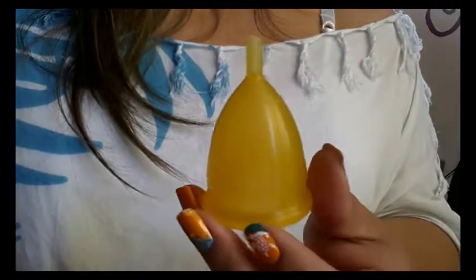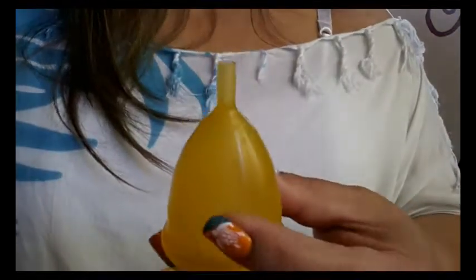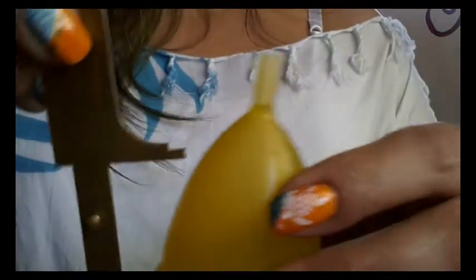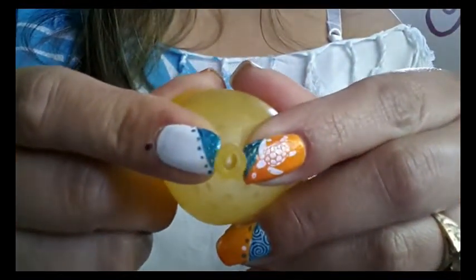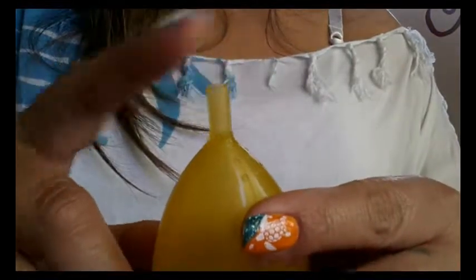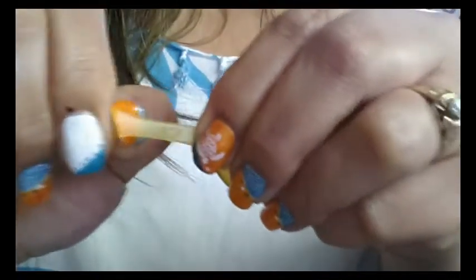So I do have a large cup here. I didn't order the small size in this cup so I can't compare. But this cup measures approximately 2 inches tall minus the stem, and I'll go ahead and show you the numbers. Starting with the stem — it is a hollow stem and you can see right down into it. It's really flexible, there's nothing inside to hold it back so there's no real resistance. And it is fairly stretchy — I'll just hold the bottom of that stem and pull on it, it's nice and stretchy.